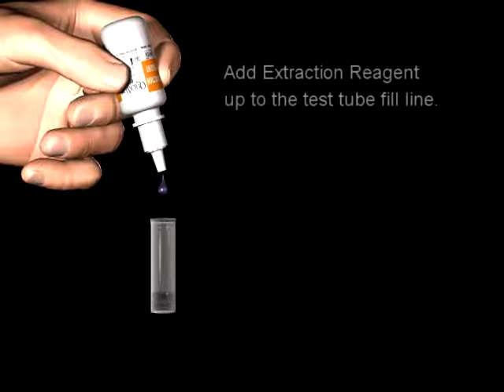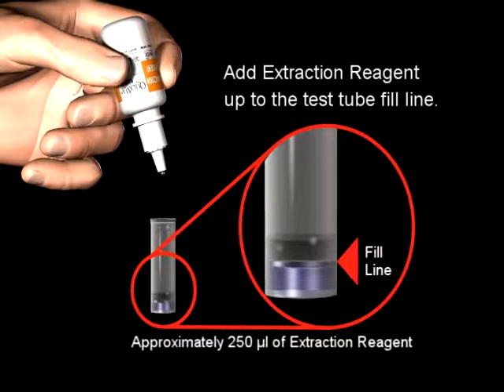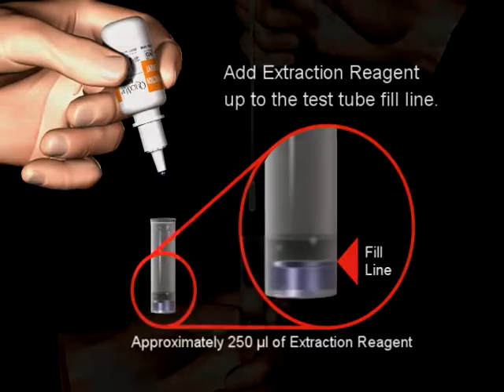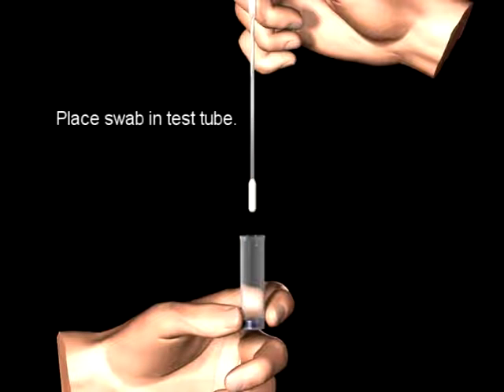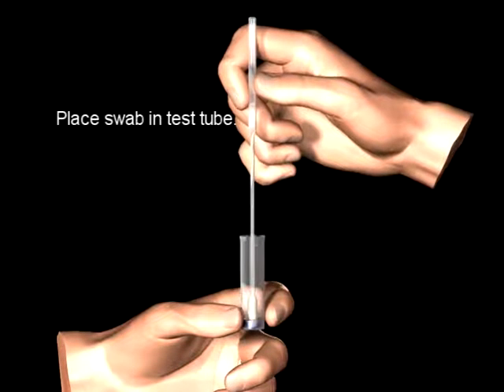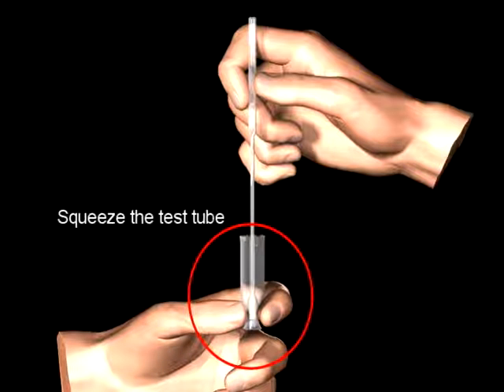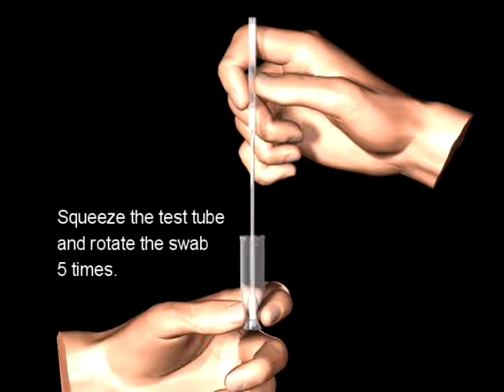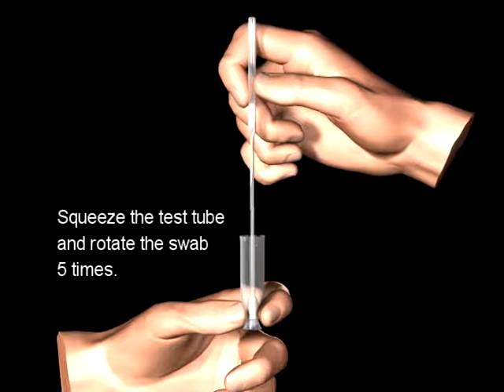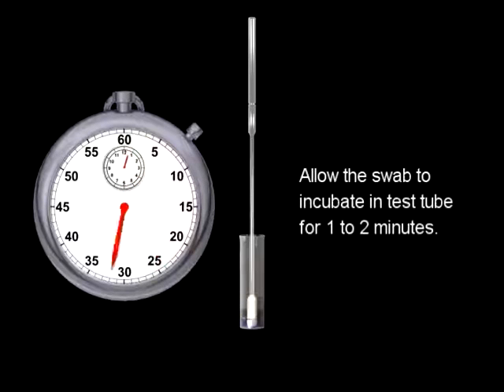Just before testing, add extraction reagent up to the test tube fill line. Too little or too much of the extraction reagent may cause erroneous test results. Place the nasal pharyngeal swab with the patient's sample into the test tube containing the extraction reagent. Squeeze the bottom of the test tube so the swab head is compressed. Rotate the swab a minimum of five times to obtain optimal results. Allow the swab to incubate in the extraction reagent for one to two minutes.